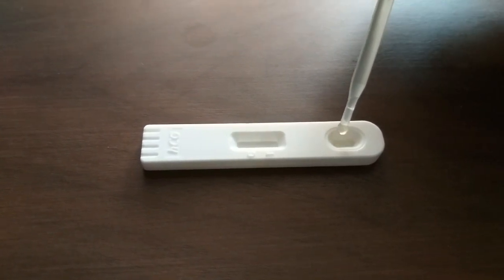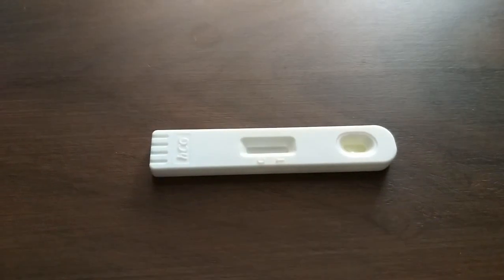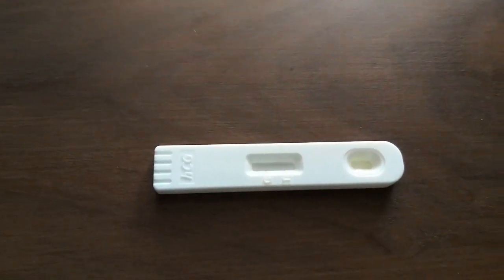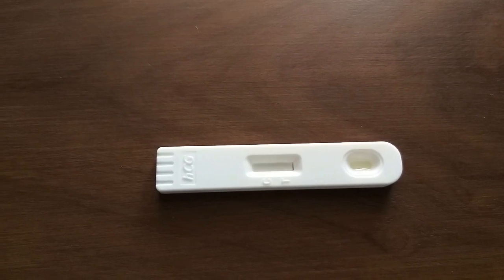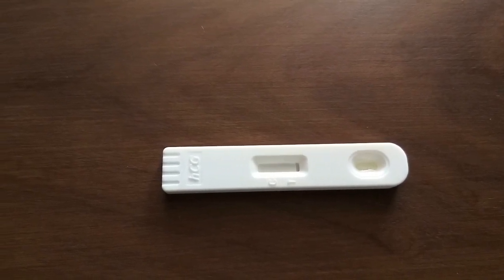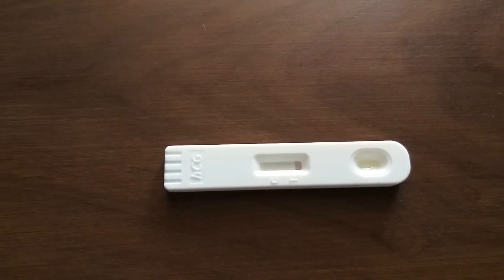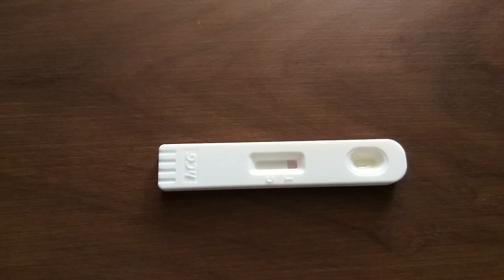1, 2, 3. You have put 3 drops over the kit. Now you will wait for 5 minutes. The test is running.